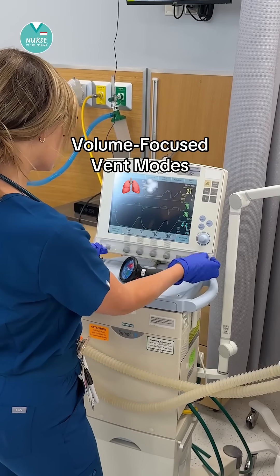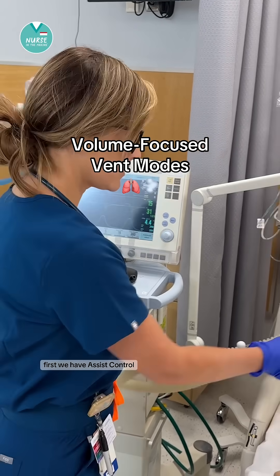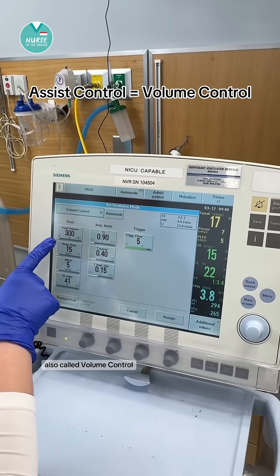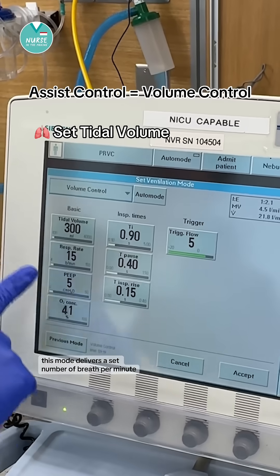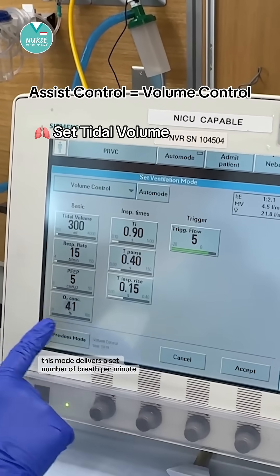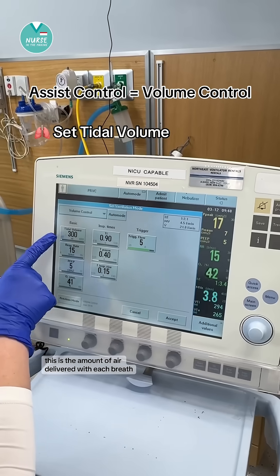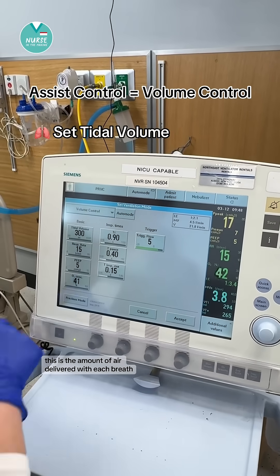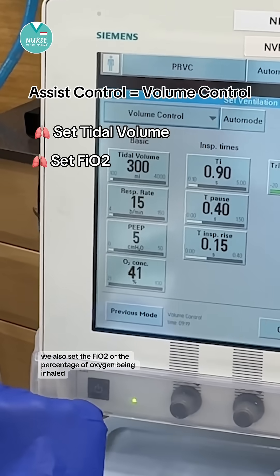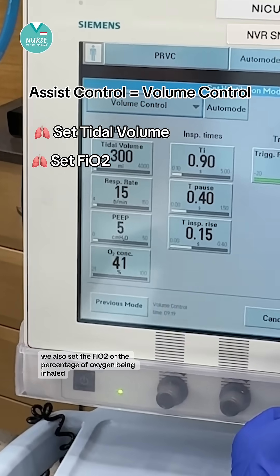Let's go over volume focused ventilator modes. First we have assist control, also called volume control. This mode delivers a set number of breaths per minute, each with a set tidal volume — the amount of air delivered with each breath. We also set the FiO2, or the percentage of oxygen being inhaled.